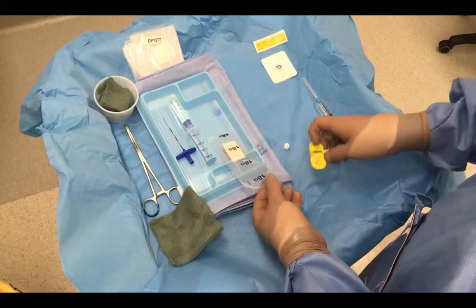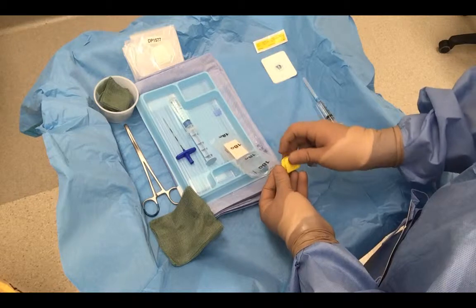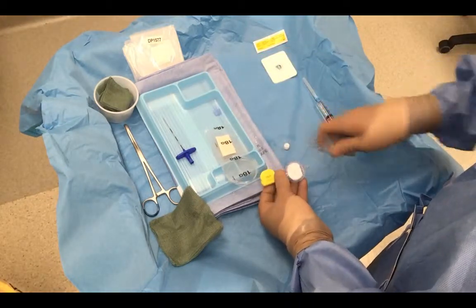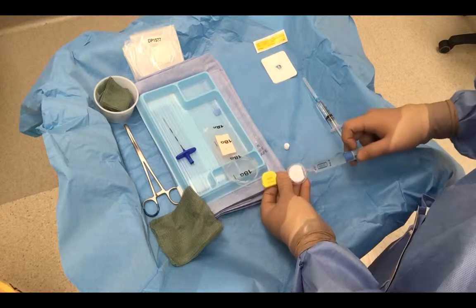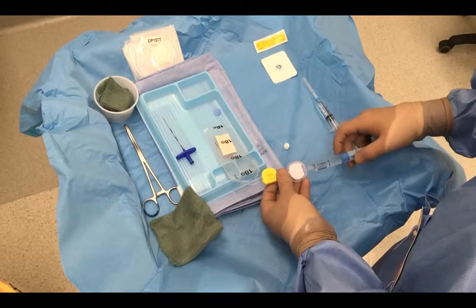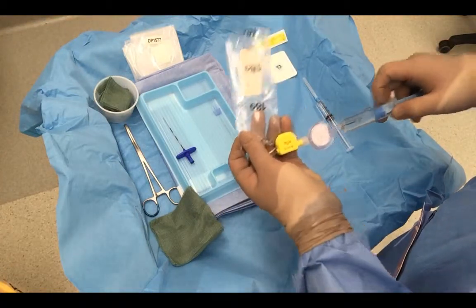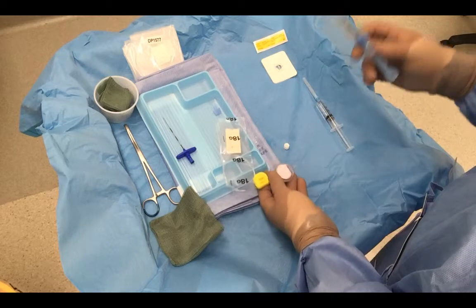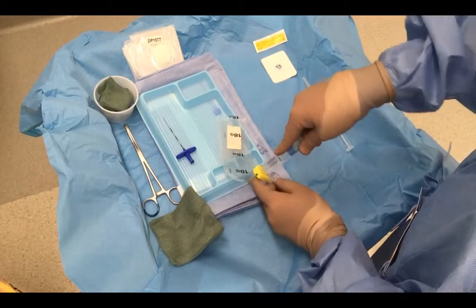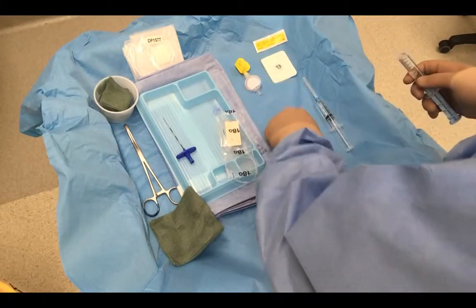All of the catheter that's actually going to go inside the patient is still sterile in this irradiated bag. Now, we've blocked our hub. We're going to flush our filter at the same time so that there's no air in there, as we see. And now, we've got water coming out the end of our catheter. Okay. This system, the Portex system, simply requires a Luer slip syringe to unlock that hub.